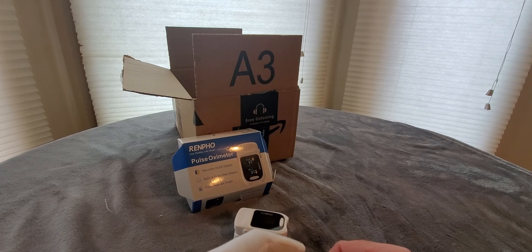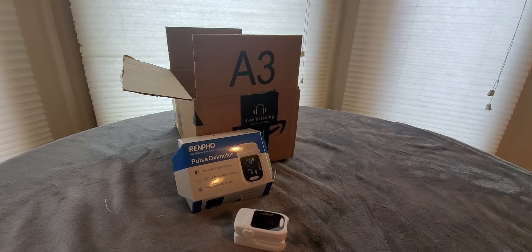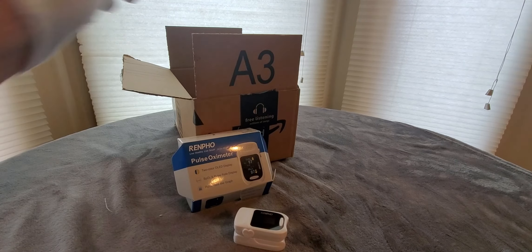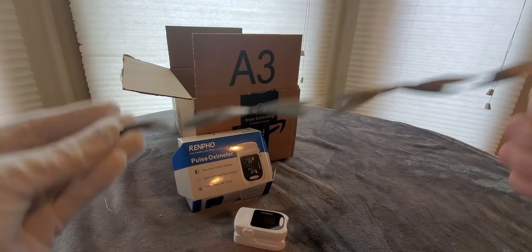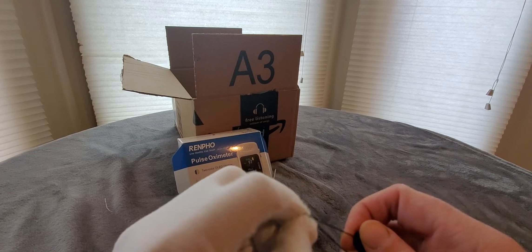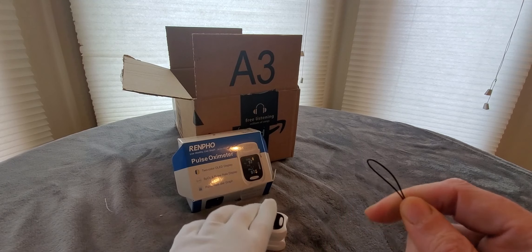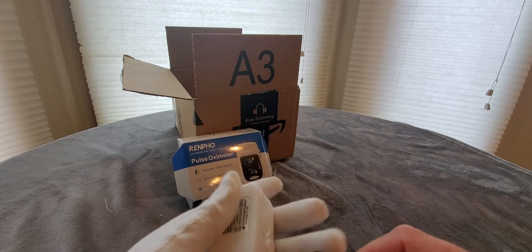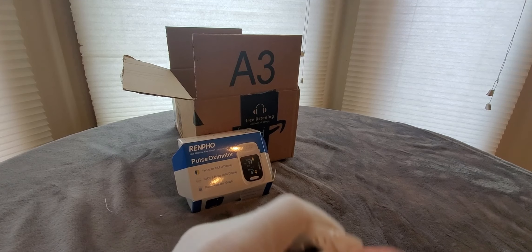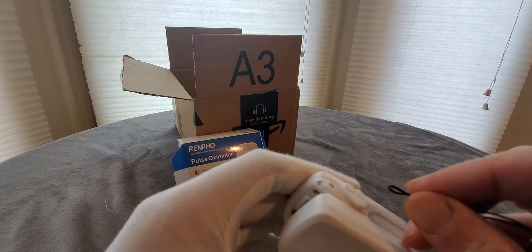So we know it works. I am okay. Now we're gonna do this little lanyard — there we go, it's ripping open sometimes. Here we go, see — you take this little guy, there's a little teeny string, or your thingy. Gotta loop it through — you guys can see — might help a little bit.